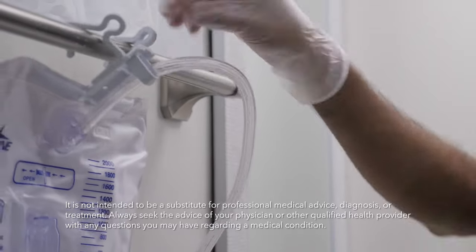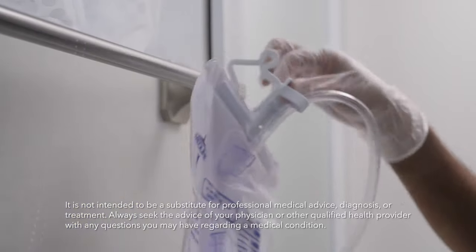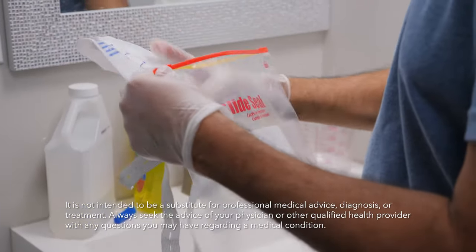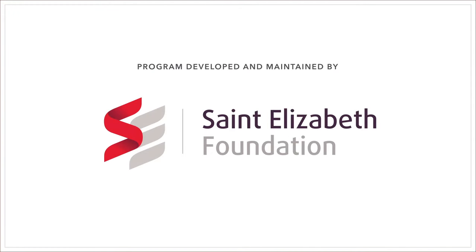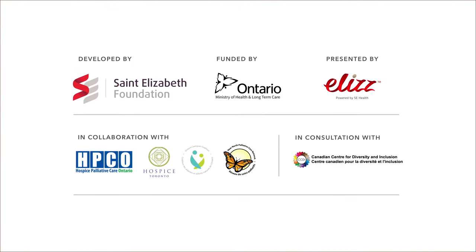Catheters can be intimidating at first, but they don't have to be. If you practice these four steps, you will find that it's not as hard as you first thought. For more caregiver support and resources, be sure to visit our care channel.